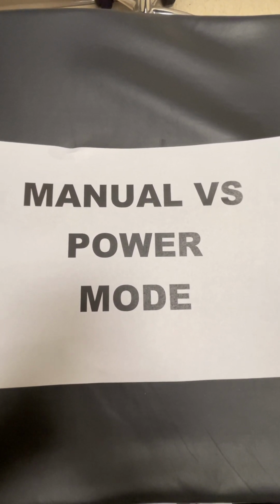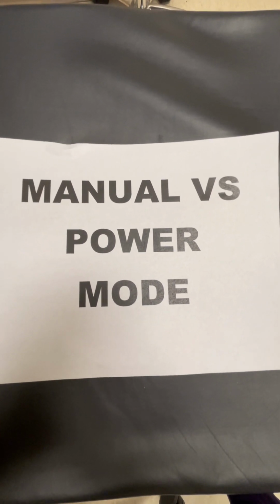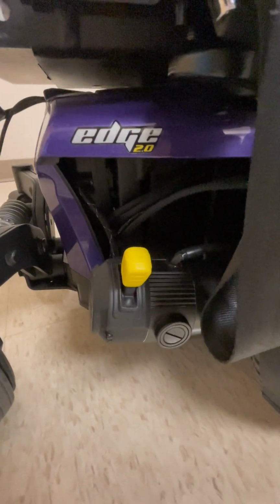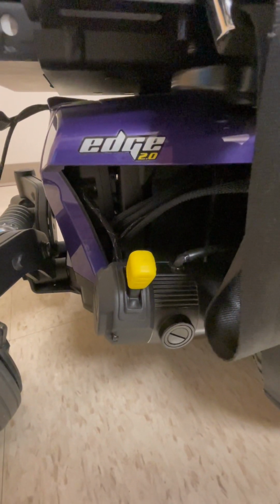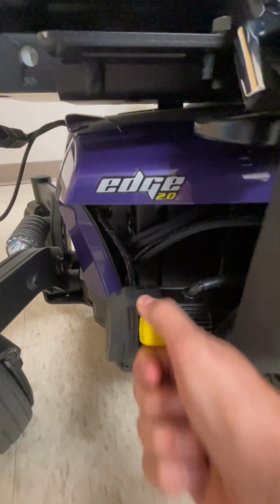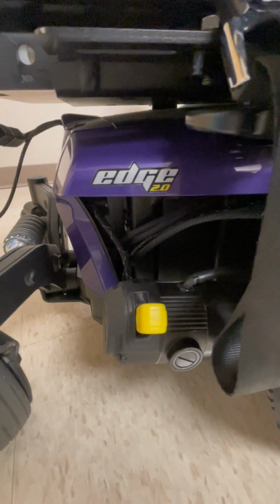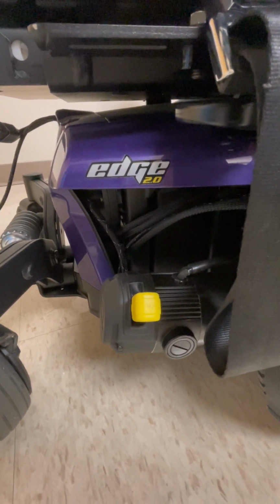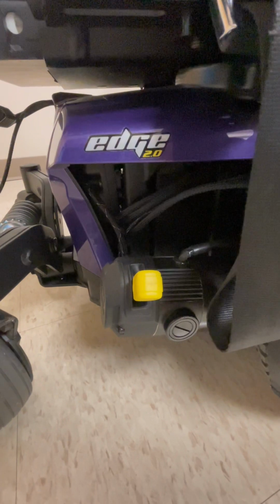In order to switch to manual mode, look on the bottom of the chair behind the large wheel and you'll see a yellow switch. When this switch is in the upward position, as it is now, the brakes are locked and the patient may drive the chair. If you move the yellow switch downwards into an unlocked position, the patient cannot drive using the joystick and you may now manually push the patient in the chair.